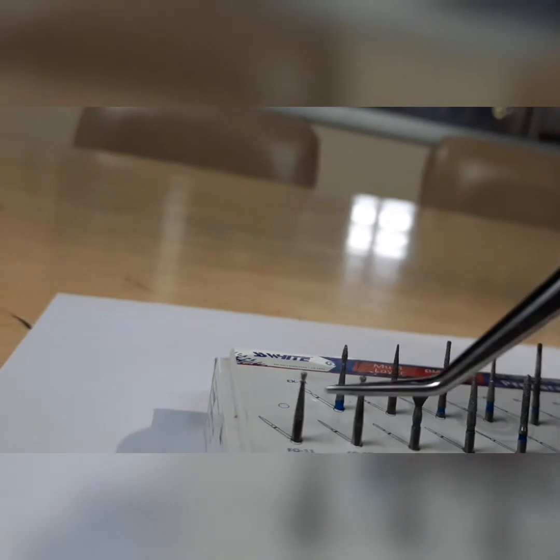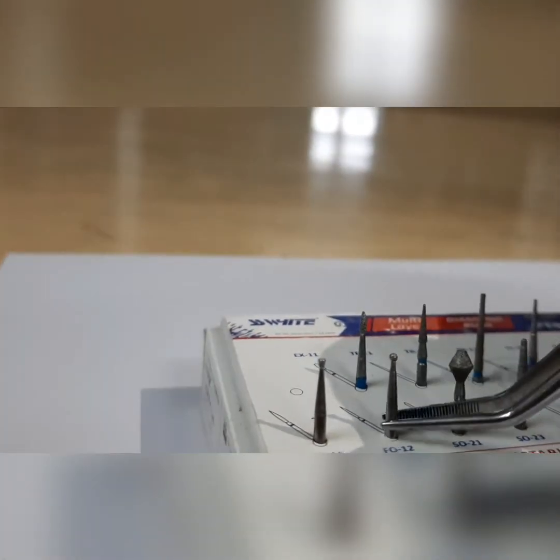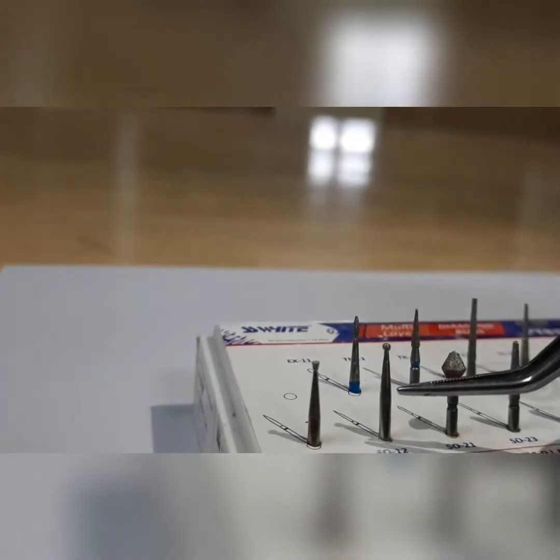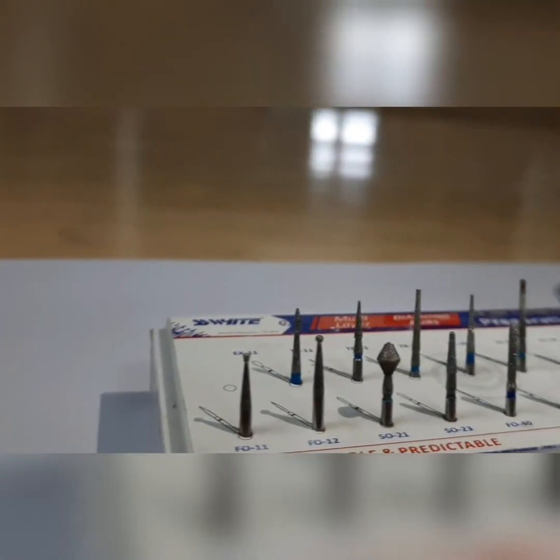Moving further, you have an inverted cone burr, which is usually used in partial veneer preparations. There is also a round burr which has a round ball at the top — this is used initially when we have to start the preparation.